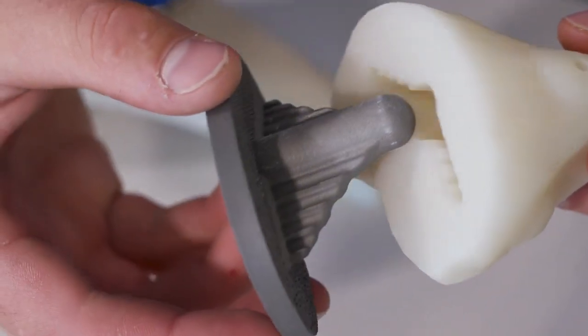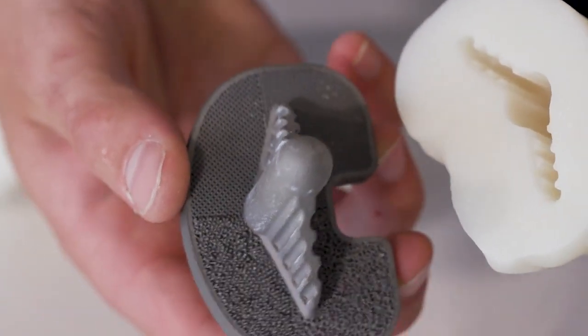What we're looking at here? They look like knees — they are knees. What we're looking at on this one is an uncemented tibial implant. It inserts into the tibia, and you can see the different types of porous structure that we can print on here to promote that bony ingrowth.